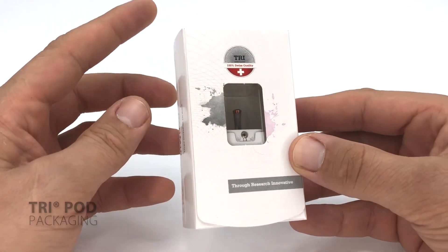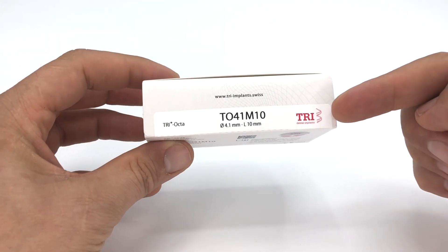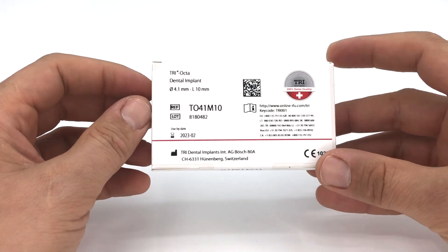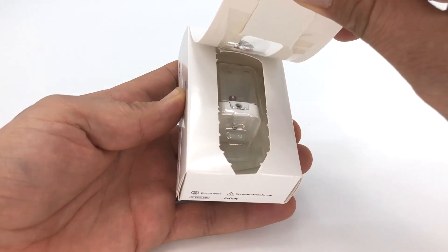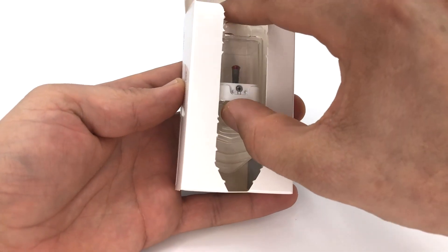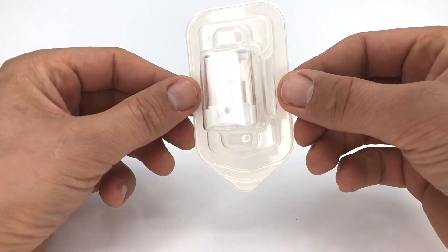Let's have a look together. This is the tripod packaging shown with a tissue level implant. The article number and the red color coding are on the backside. You can see the label with all the information needed. To open, easily rip the packaging from the bottom to the top and take the sterilized blister out of the box.